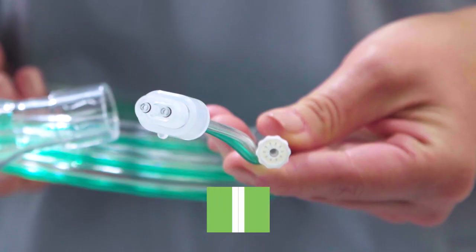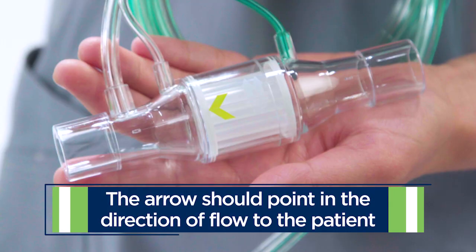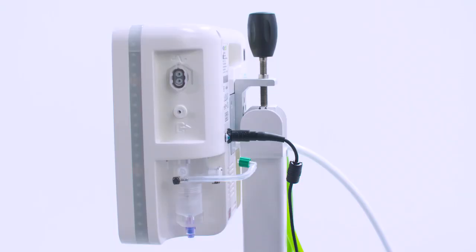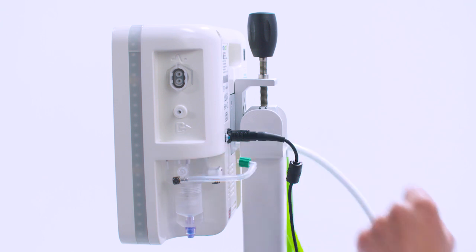Make sure there are no visible signs of damage and that the O-rings are properly seated without any sign of damage or distortion. Make sure to orientate the NOx flow in the proper direction with the arrow always pointing in the direction of flow to the patient. You'll notice the 3 ports on the side of the NOxBOXi device are different sizes to avoid connection to the wrong port.